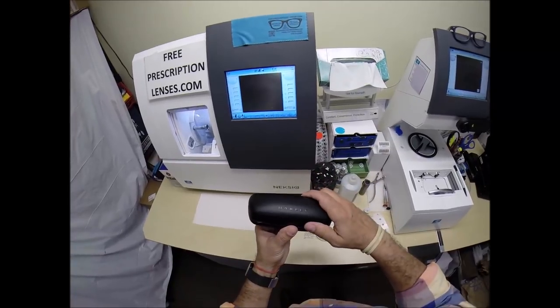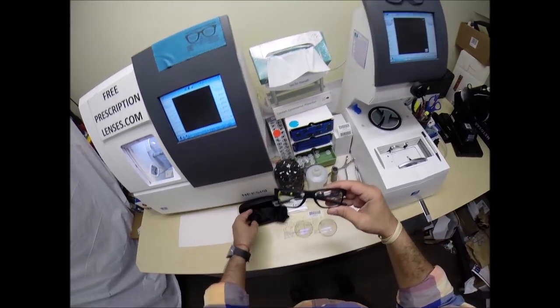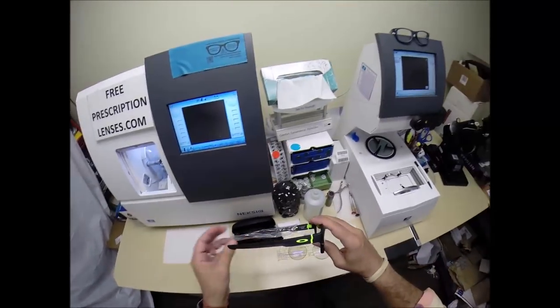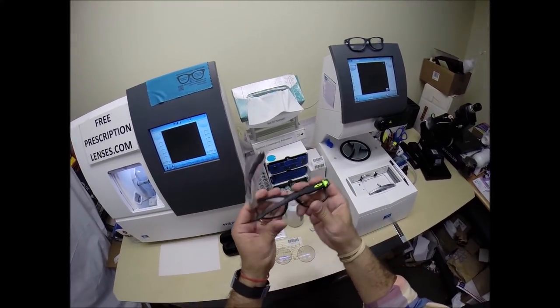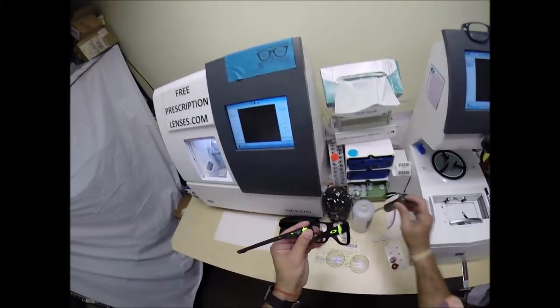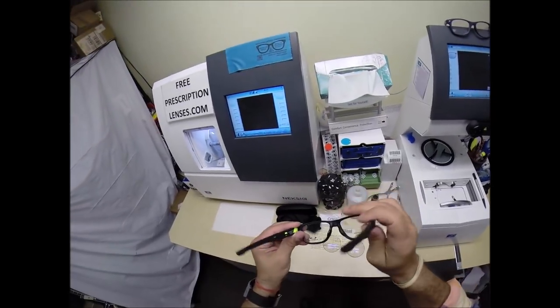Of course you got your Oakley hard shell case. Inside your Oakley cleaning cloth, which doubles as the carrying case bag. And the main attraction — the Oakley 8132, which is the Cross-Range Switch. I believe that's the name: Cross-Range Switch in color 04, which is the black with the lime green. Size 52, the satin black with the lime green — and of course the Cross-Range Switch is nice.